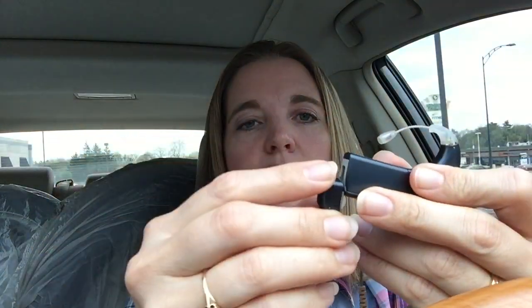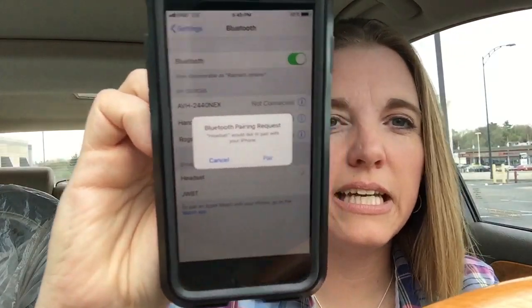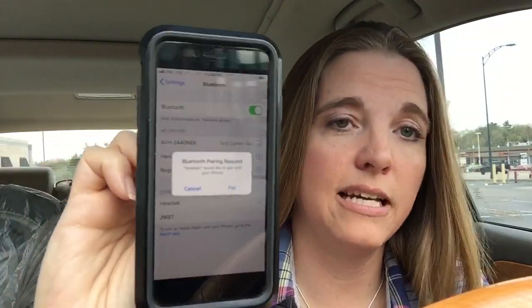What I wanted to do today is show you very quickly how easy it is to pair this Naida CI Connect with an iPhone. You take your processor with a 170 battery and your Connect, and you simply slide it onto the bottom. Once it's connected to the battery, it will automatically open up a pairing window. It says 'Bluetooth pairing request — headset would like to pair,' you click Pair, and you hear this little doo doo doo doo doo — it's already connected.